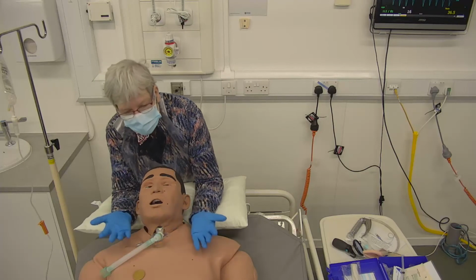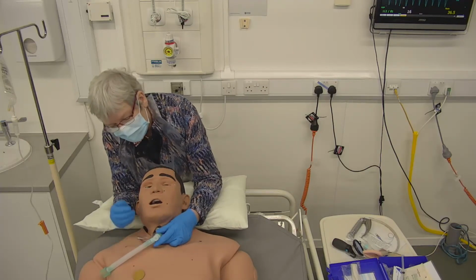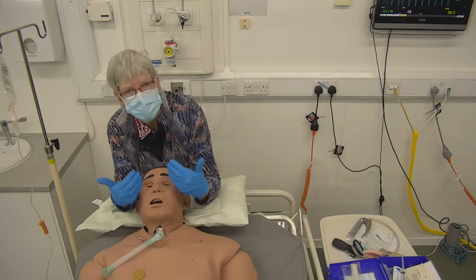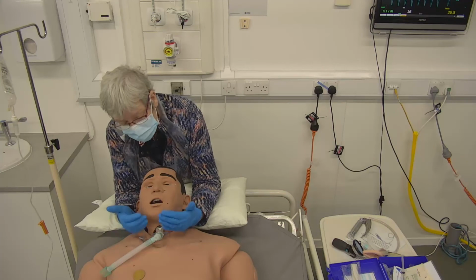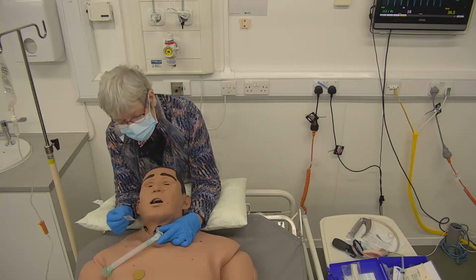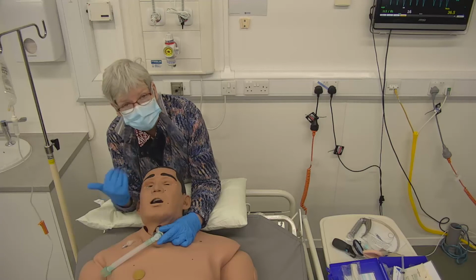And so you can wake up and you can be aware, and you can't speak because this is below the level of the larynx, and that little air balloon means that there is no air travelling over the larynx in order for it to work. So people can be awake and aware, but they might not be able to speak. In order to speak, you might need to let that down so the air can travel up over the larynx.